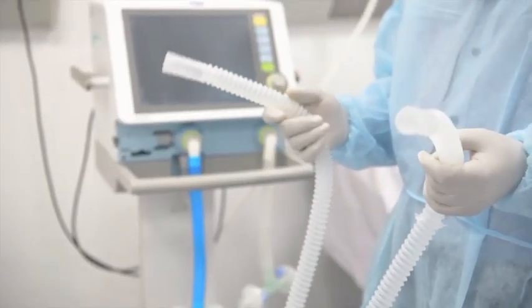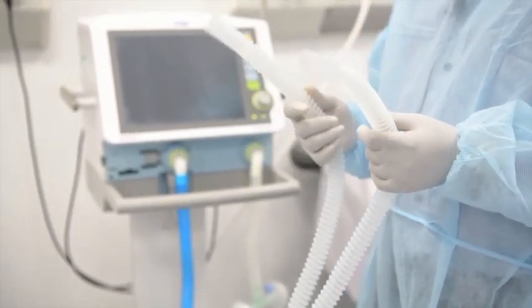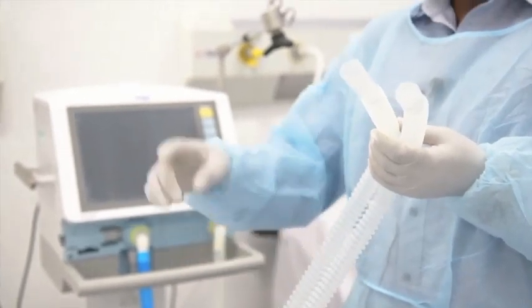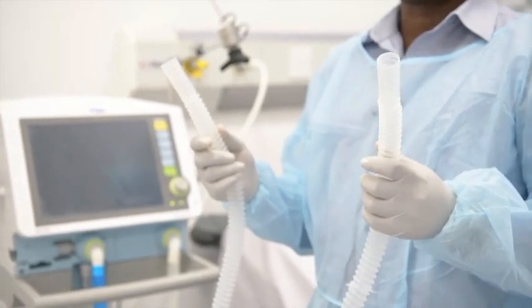Now you need to take the ventilator circuit. For each patient, you'll have a pair of ventilator circuits with a T-connection at the end. So each of these, one for inspiration, the other one for exhalation.